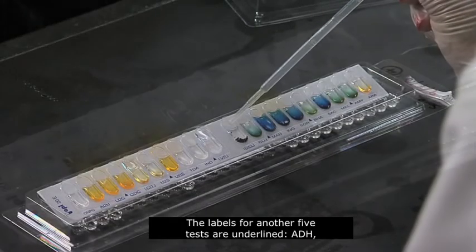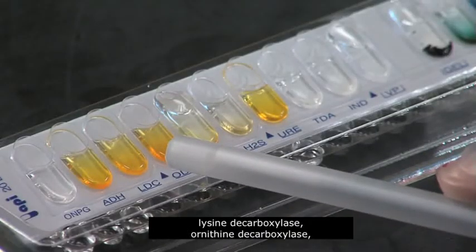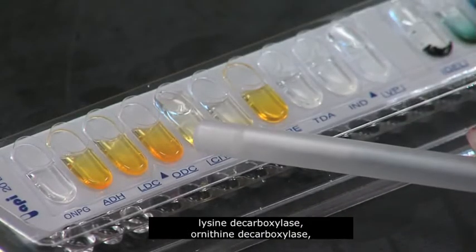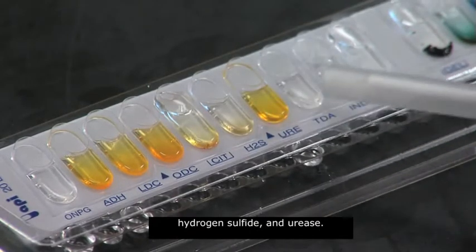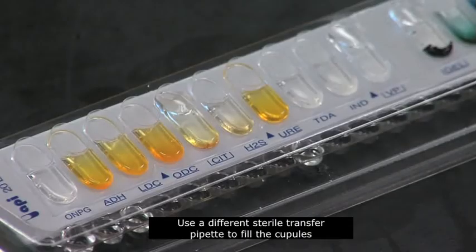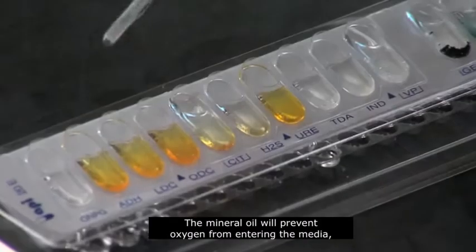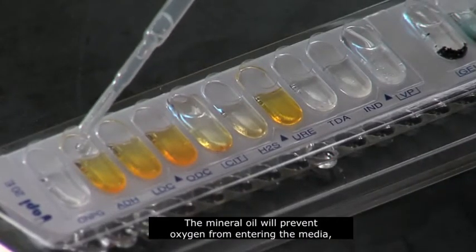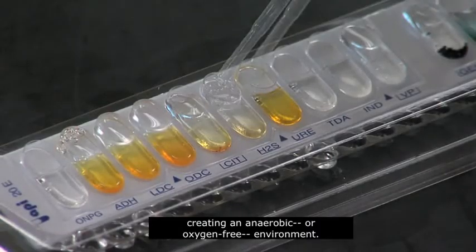The labels for another five tests are underlined: ADH, lysine decarboxylase, ornithine decarboxylase, hydrogen sulfide, and urease. Use a different sterile transfer pipette to fill the cupules of these tests with sterile mineral oil. The mineral oil will prevent oxygen from entering the media, creating an anaerobic, or oxygen-free, environment.